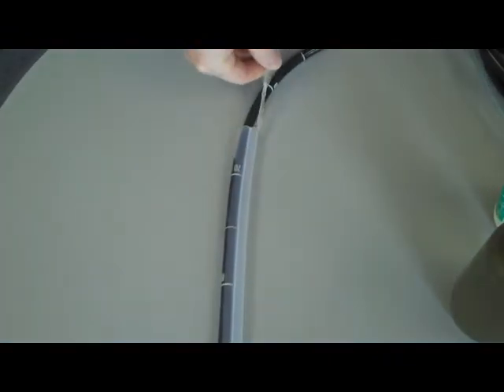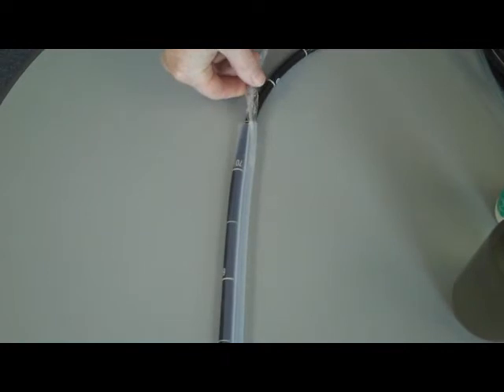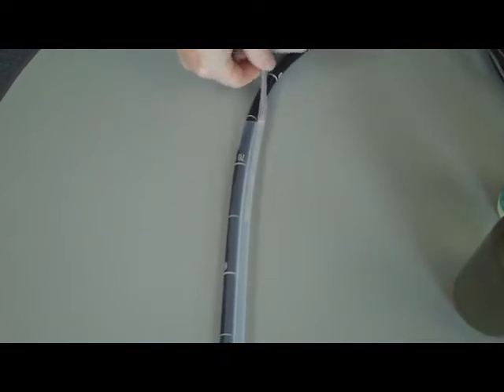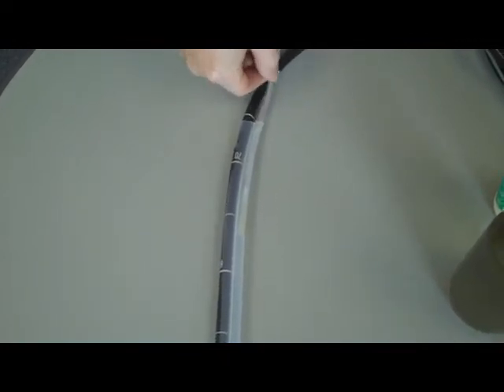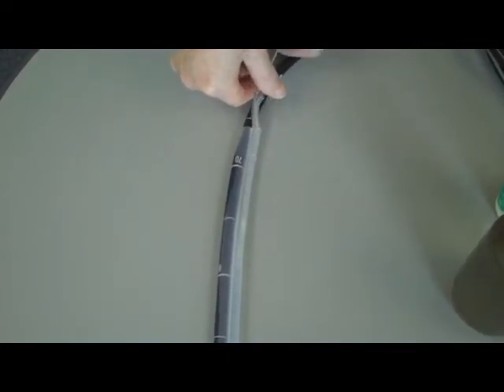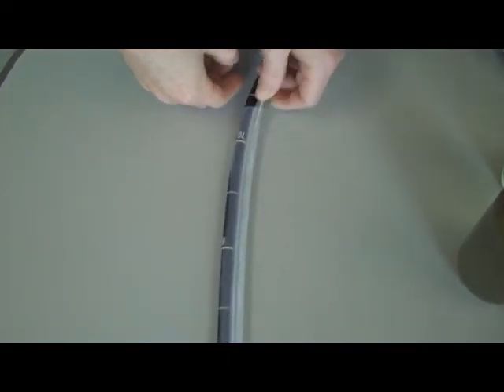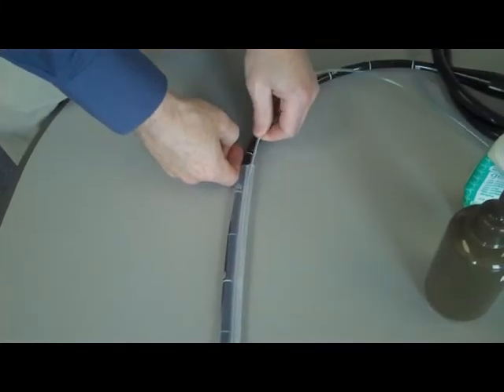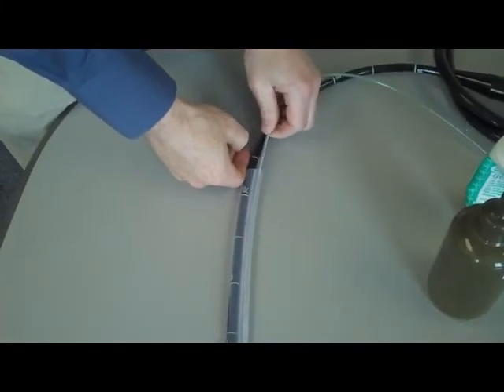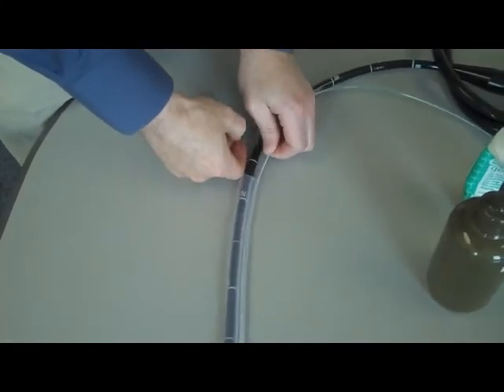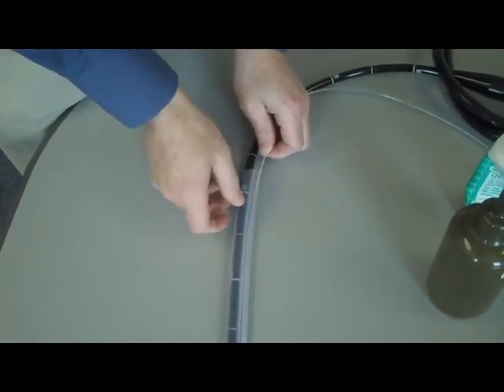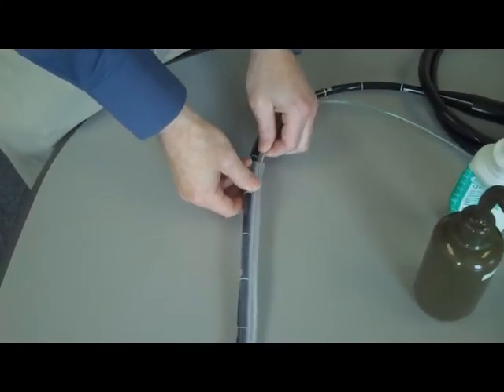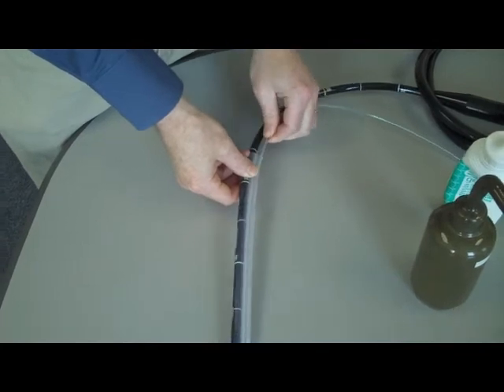Keep pushing the catheter down the tube as shown until the catheter tip is visible at the bottom of the ECD.